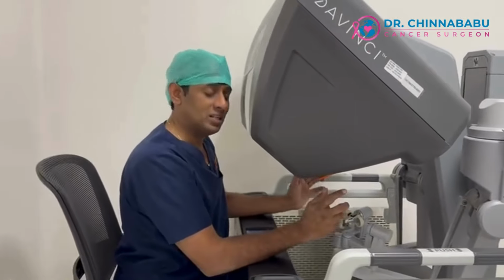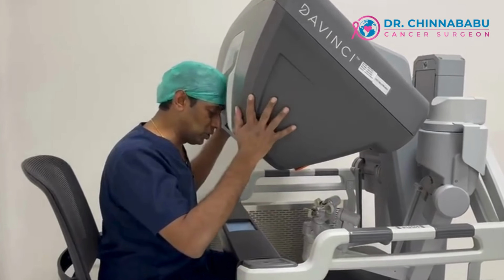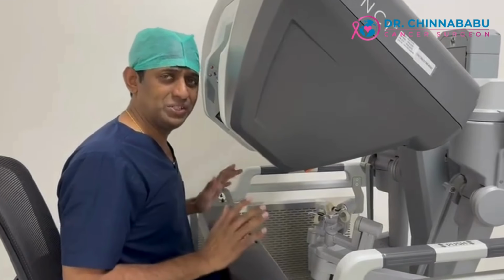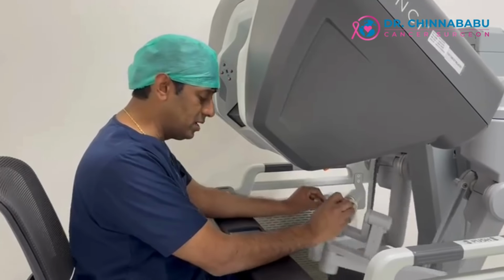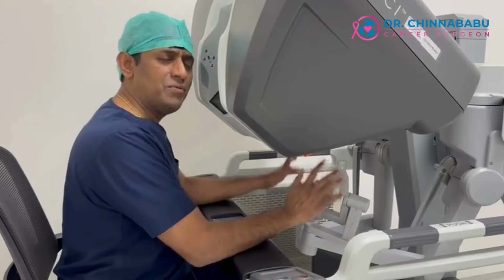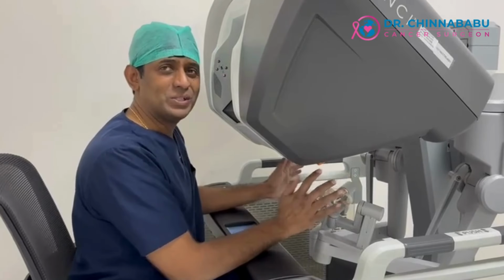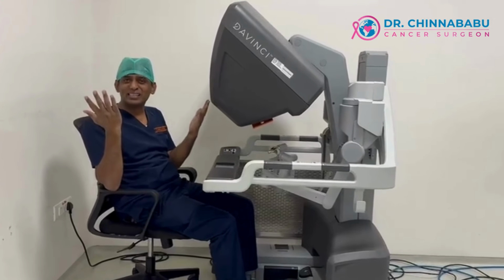So in robotics, the surgeon is in control of most of the process, because on the console that we have for the surgeon, we have everything to be controlled from here. Your joysticks, the master slave movement, and then the camera, the fourth arm, the cautery, everything is under your control. So you can do precision surgery, more importantly, sitting in a chair. You can relax and operate without getting scrubbed. You're able to do a more complex surgery.